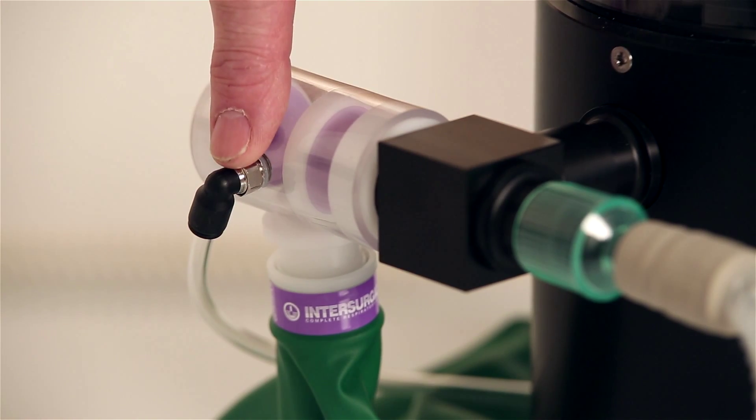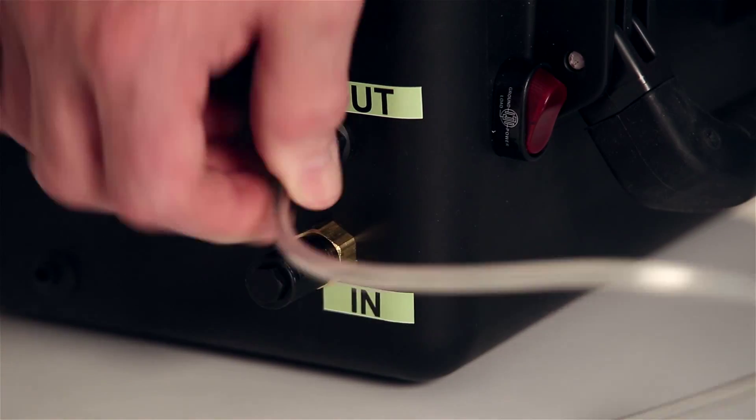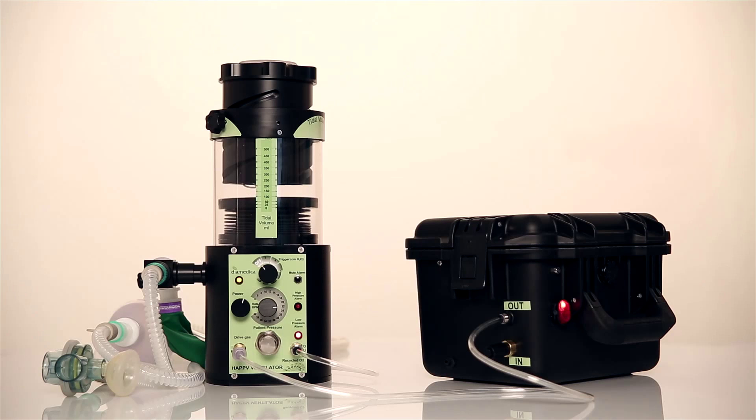If no oxygen source is available, then if supplied, the compressor pump using air can be used to drive the ventilator.